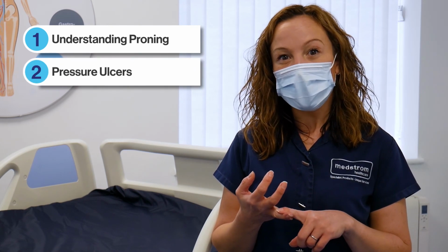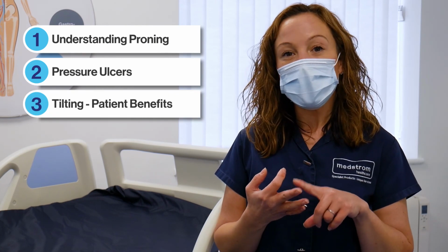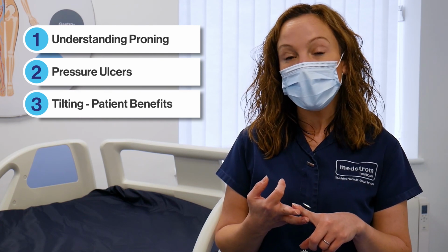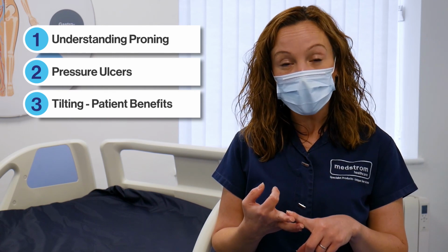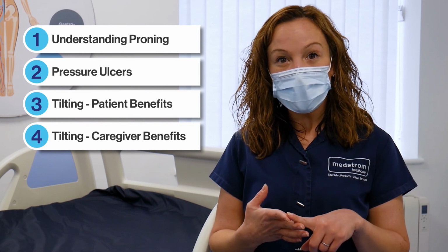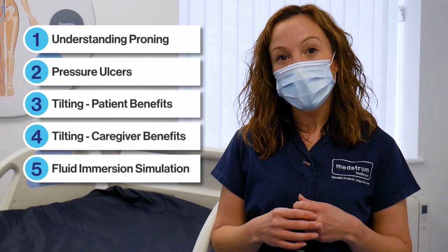So with patients who are respiratory compromised, we've talked about proning patients. We've talked about how pressure ulcers are the most common complication of proning patients. We've spoken about the use of lateral tilt to assist patients who may be hemodynamically unstable and physically unable to be repositioned for a prolonged period of time. We've spoken about how lateral tilt helps the caregivers and about air fluidized and fluid immersion therapies with this group of patients.